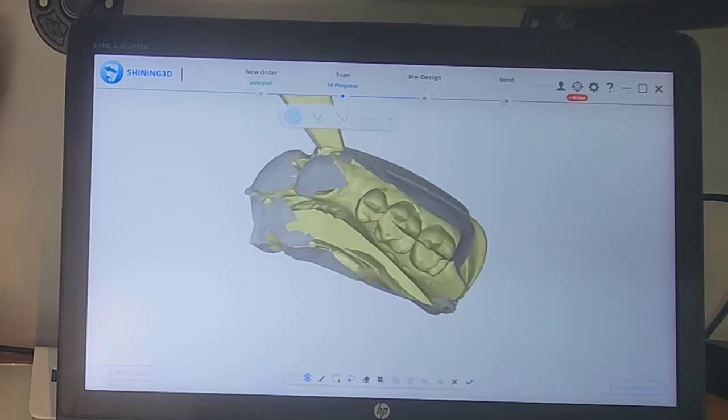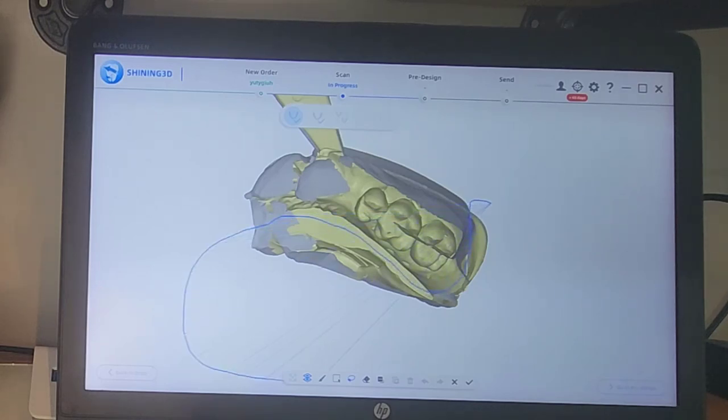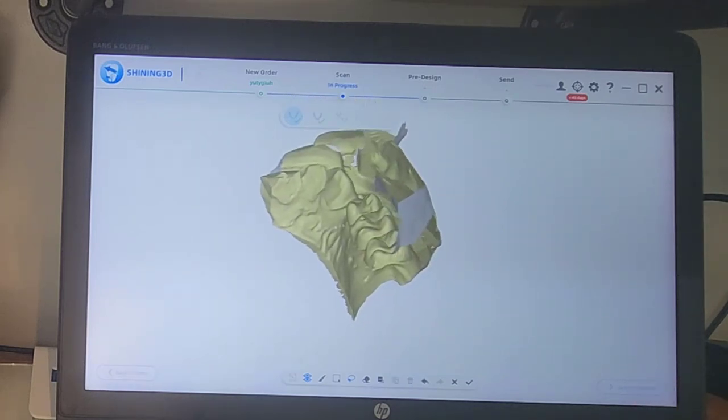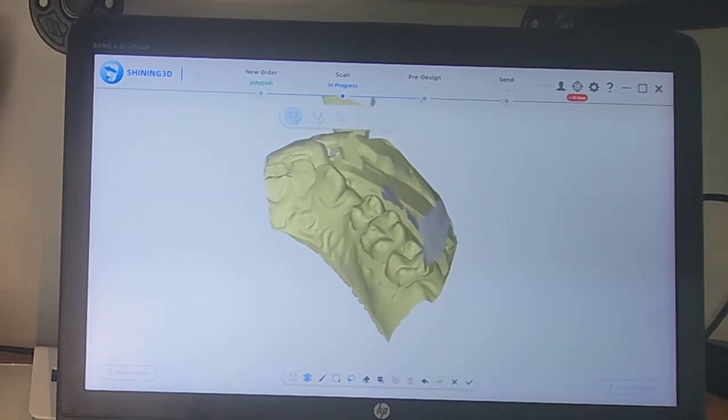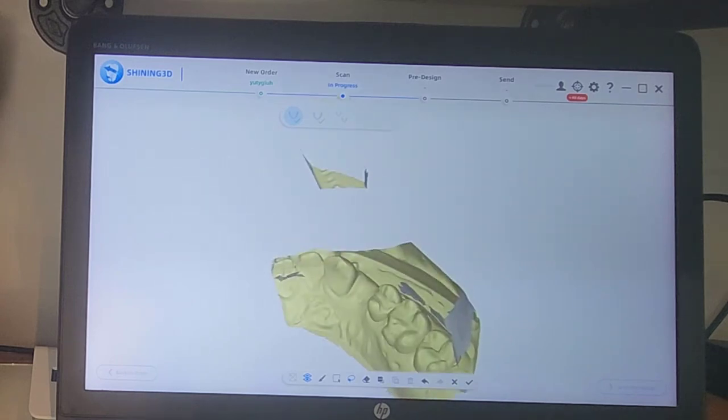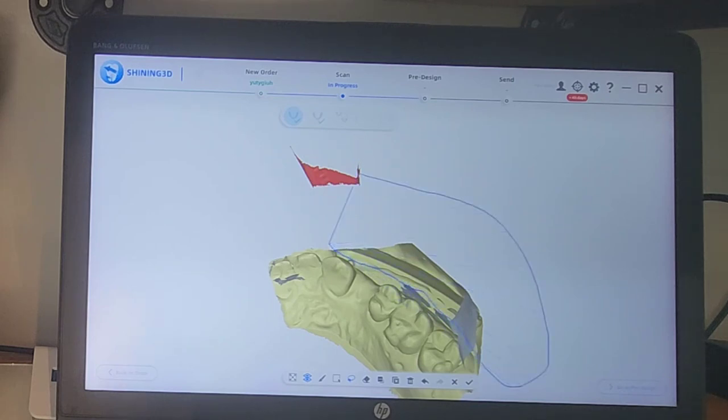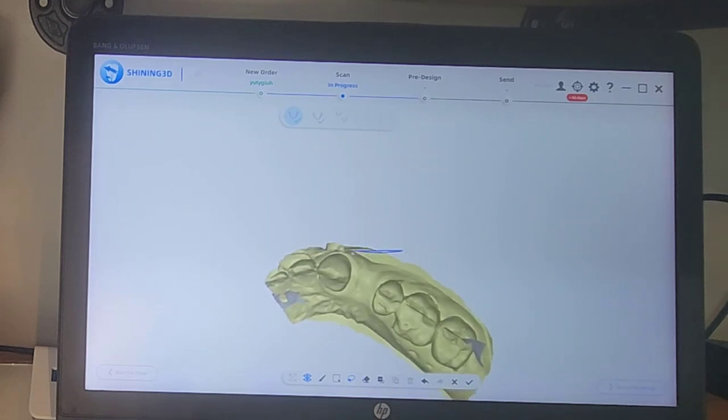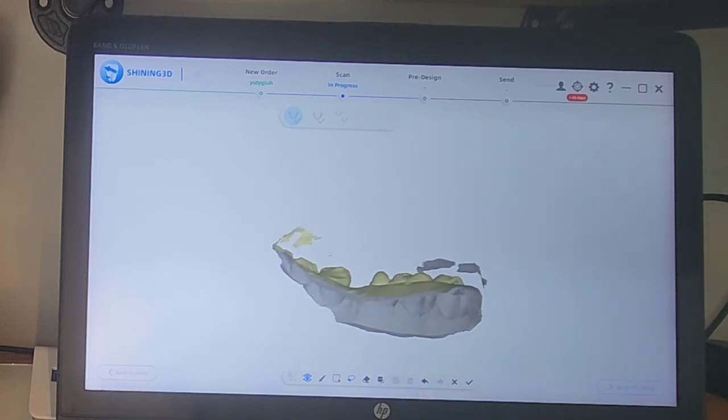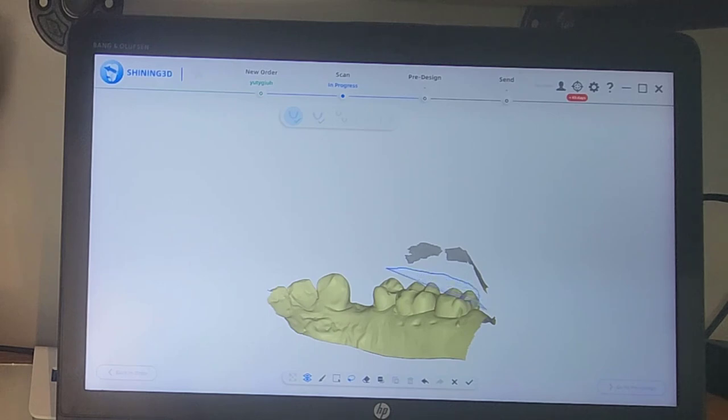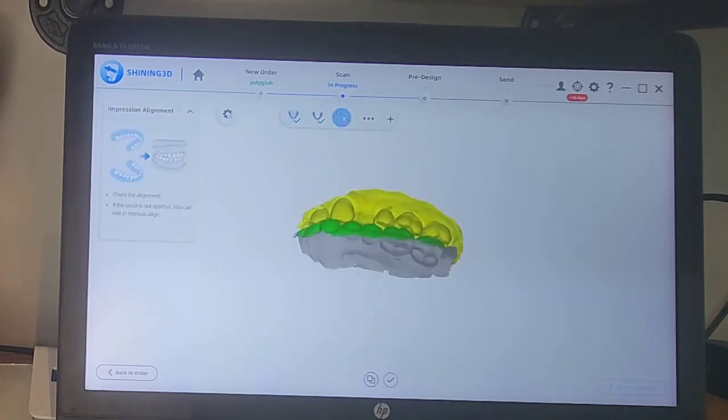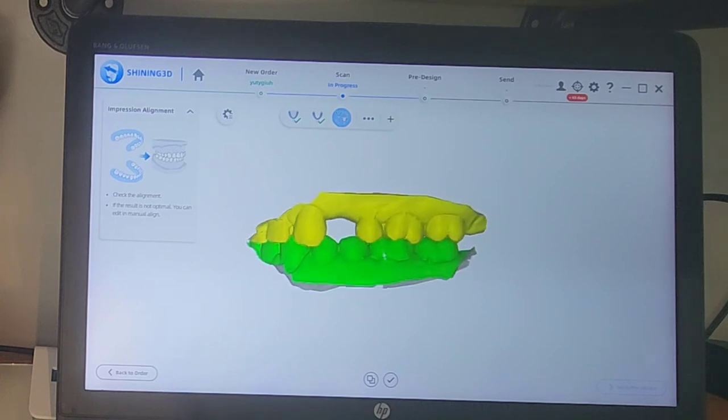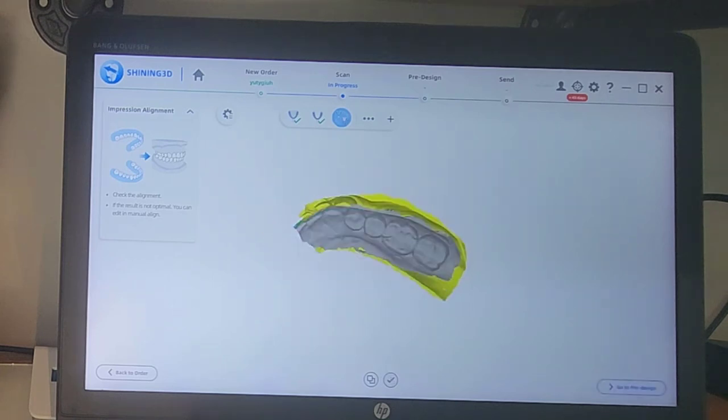Now let's go to the maxillary model. Okay, so maxillary model, same thing. I'm going to cut away some of this excess data. So usually right there on the boundary of your impression, you'll want to cut that away. And we'll get that little bit. As well as this. And then just this last little wrinkle here. There we go. And then if you do have some little floating pieces, you can grab those as well. And now we're good.